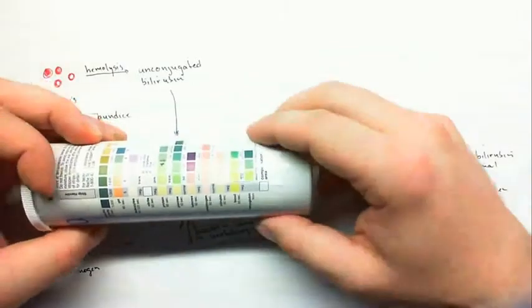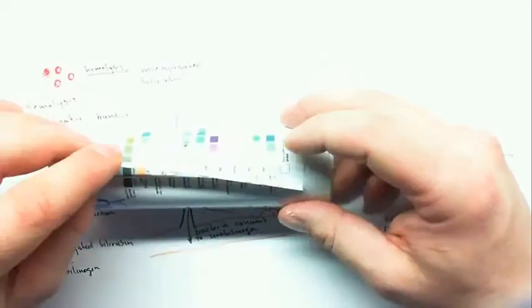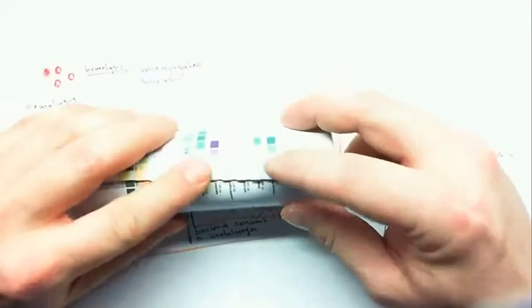Last up then is to look at actual blood and hemoglobin. And it might be a little hard to see, but again, as I said before, this last pad on the strip is used to read off either blood or hemoglobin. And the way I like to think about this is if blood actually strikes this pad, a whole blood cell, it's kind of like a paintball hitting this pad, and so you'll see specks of positive color change.